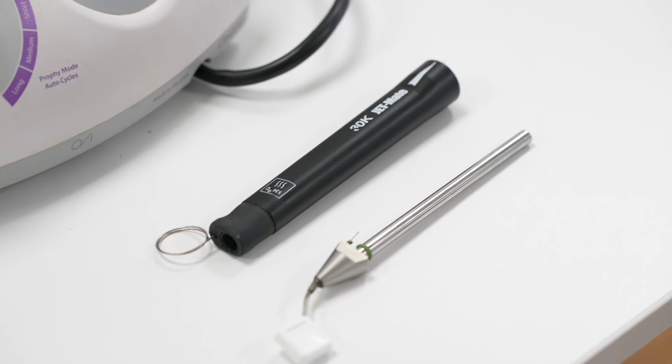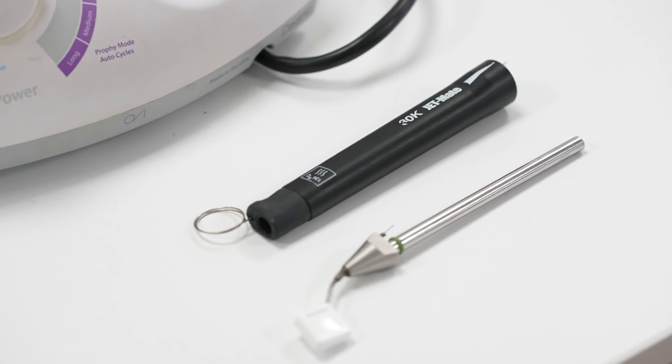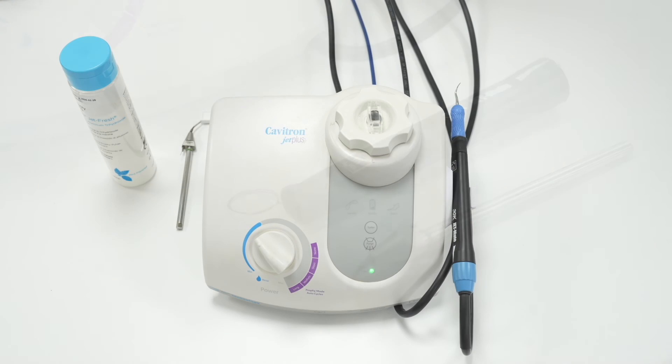The cleaning tool is not to clean out or unblock the insert, but to keep it unblocked. To unblock a profi insert, you could try soaking the insert in hot water and using an endodontic glide path file to unblock the insert.